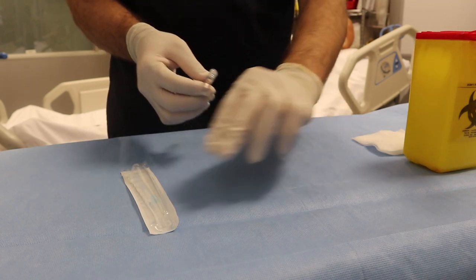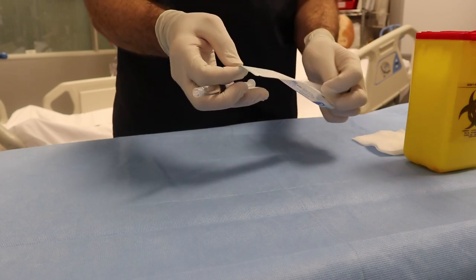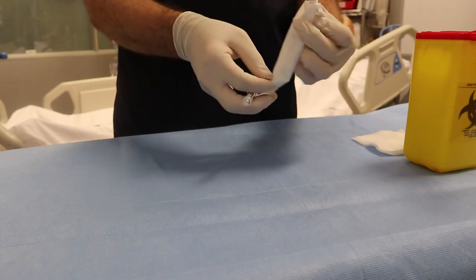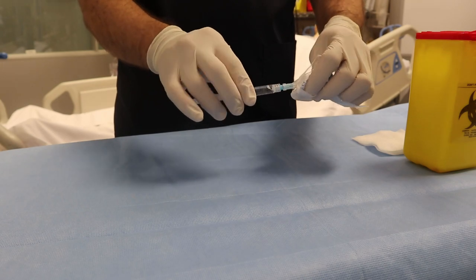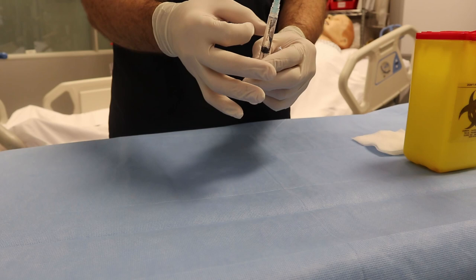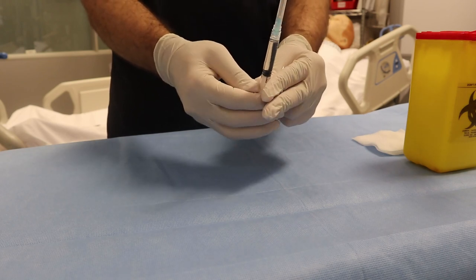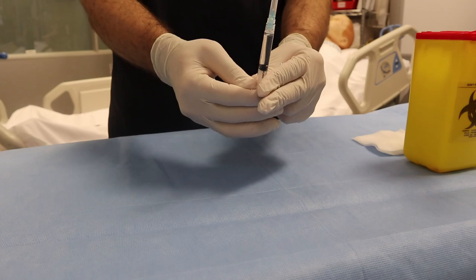If you forget, or under certain circumstances you did not use the filter needle initially, you can still use it because it works in one direction. You can aspirate using a regular needle, and then when you put the medication into a bottle, normal saline, or whichever fluid you will dilute it in, you can use the filter needle at that stage. Hope you find this video useful and will share it with your friends and colleagues. Thank you.